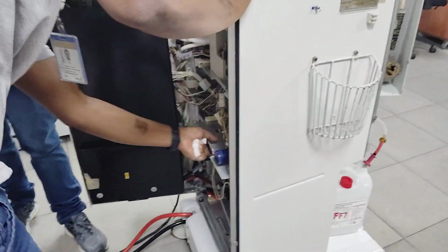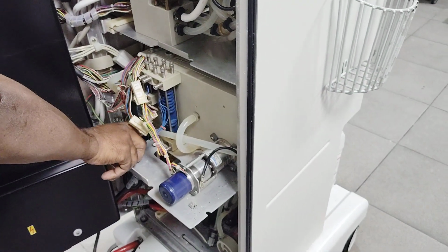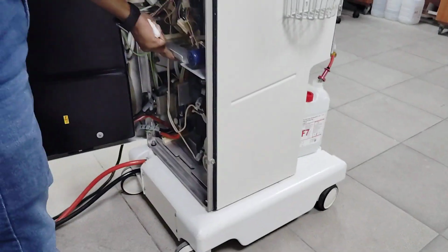On the back side of this one you can see the chamber, also a hollow kind of chamber. It will prepare the fluid, and this is called the conductivity sensor. This is called the bicarb sensor. There are temperature sensors over there. Small sensors are there. You see, this is the temperature sensor. There are some different sensors.